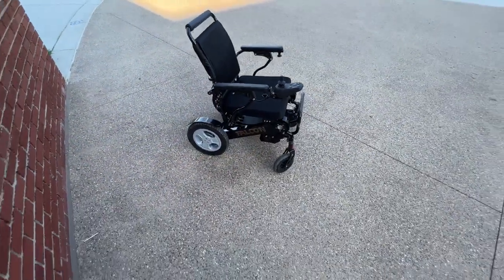It has an infinite reclining mechanism and I just reclined it. As we're talking about use and utility, the armrests lift up as well, so they elevate as the chair reclines. You have an infinite reclining mechanism here so I can just release the chair a little bit or go all the way up.